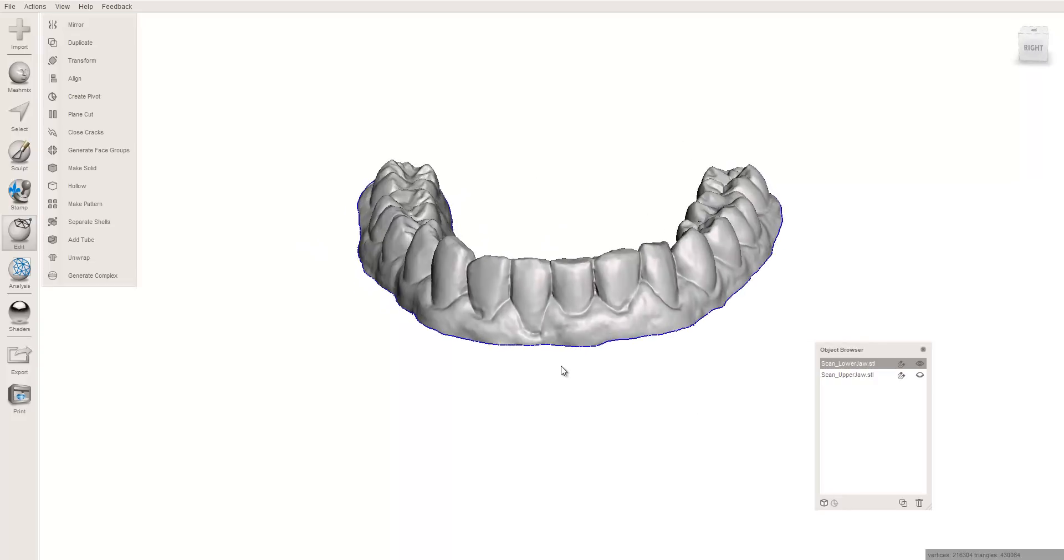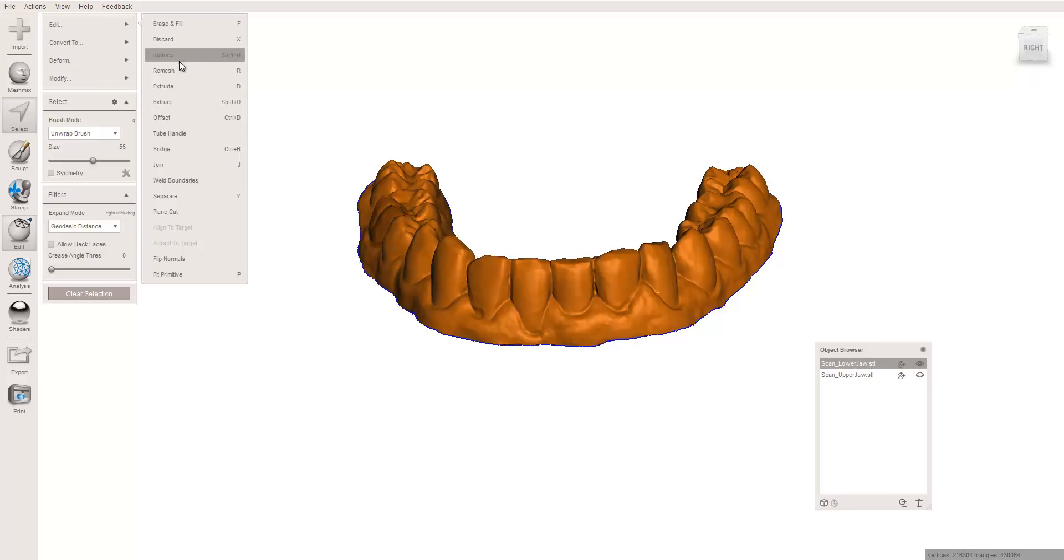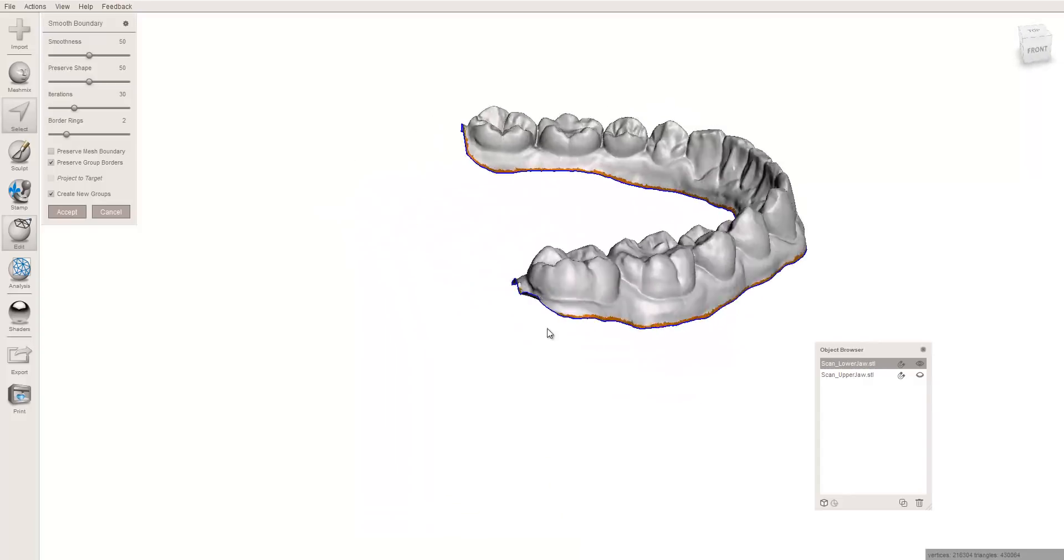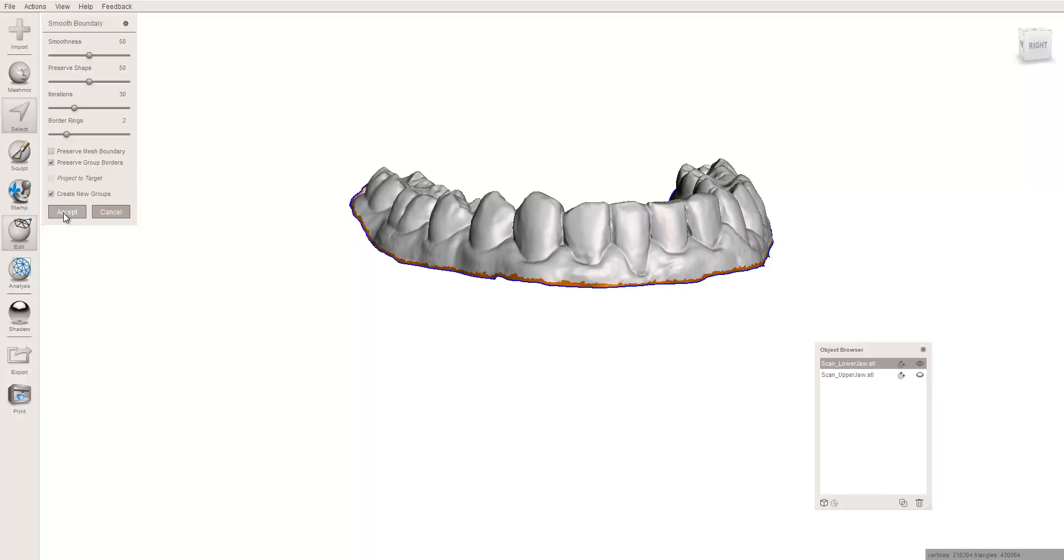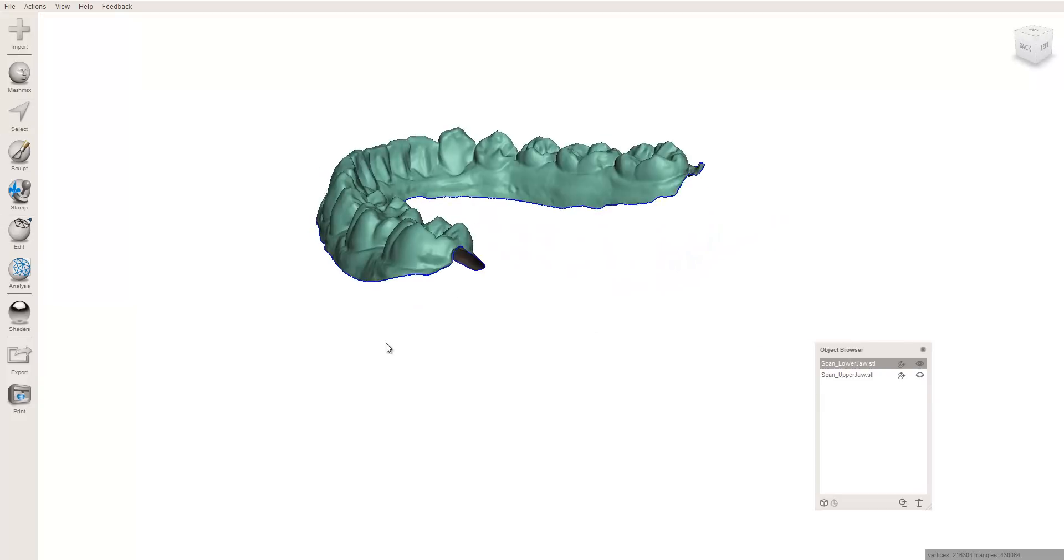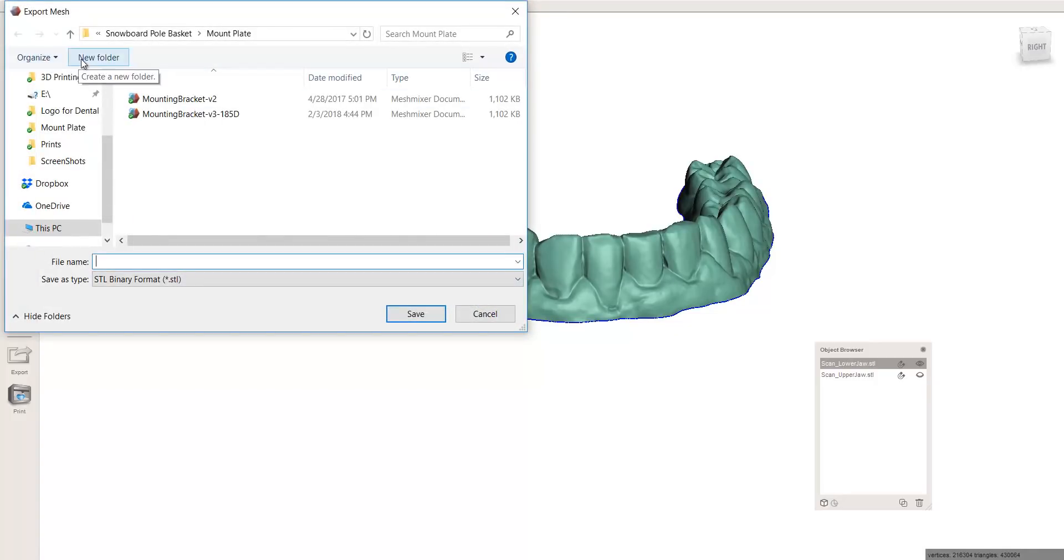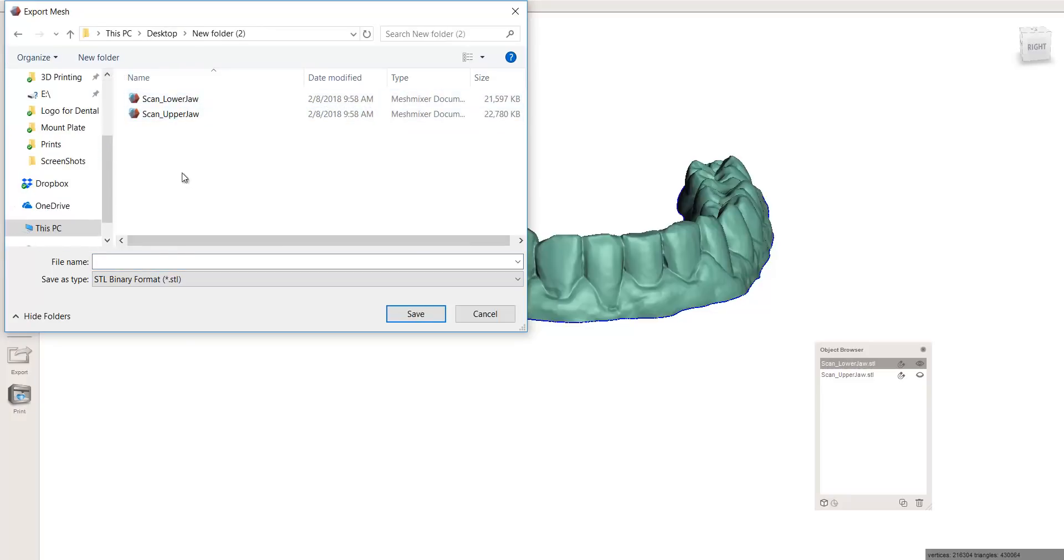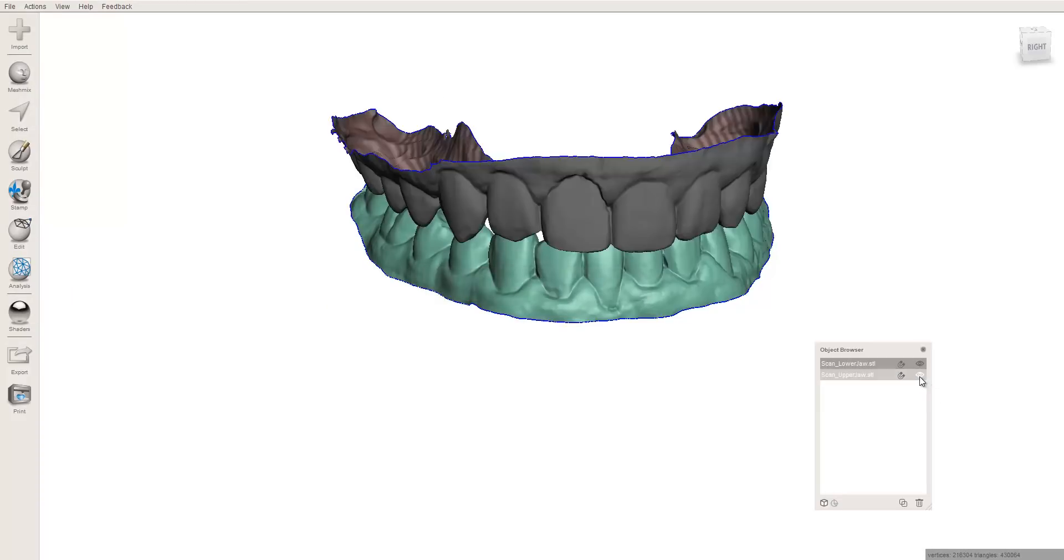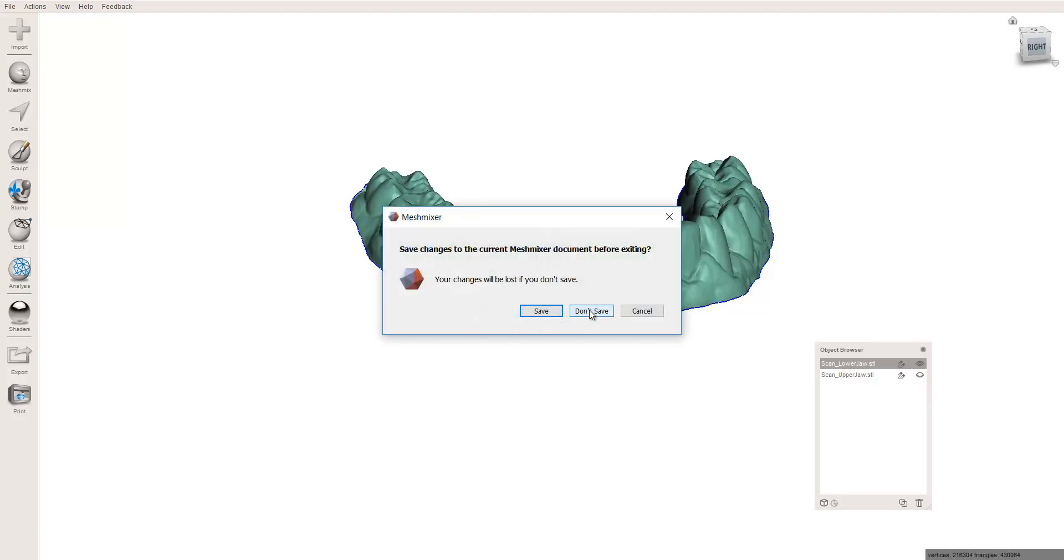Quick little cleanup. Oh, sorry. I'm sorry. Final step. Control A, which is the same thing as selecting or highlighting the whole thing. And I'm going to press B, which is the same thing as smooth boundary. And all that's going to do is make sure the edges are nice and smooth. This isn't super critical because Blue Sky Plan will smooth it anyways. This, to me, is just a little catch step. If it turns the whole model red, I know that I did not smooth something out. So, anyway, that's just quick and easy. And now I am done. I'm going to export, and I'm going to call this Lower BSP ready. All right. And there I am done. I'm not messing with the upper, so I don't need to do anything about it. And I can go ahead and close this. Don't need to save this. I'm all done.